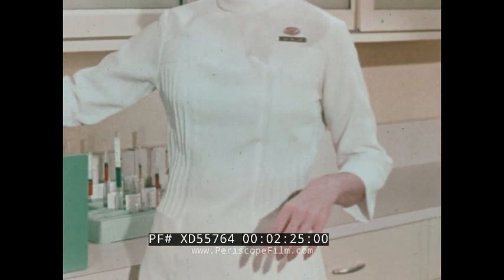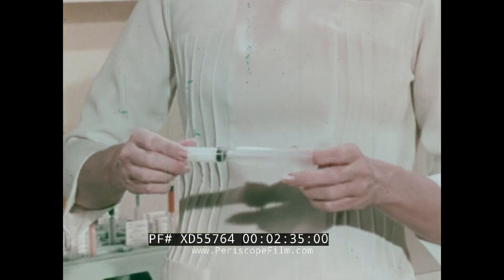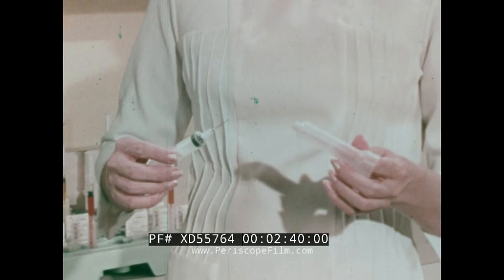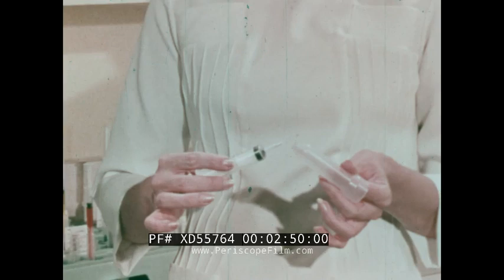The syringe needle combination unit is removed from the sleeve by pushing with a twisting motion. The sleeve is reversed and the needle sheath inserted in the small end. Pressing firmly together with a straight push-on motion ensures a tight seating of the needle. The syringe and needle is removed from the needle sheath with a straight pull-off motion. The straight push-on, pull-off motions form Monoject's exclusive sterile platform.